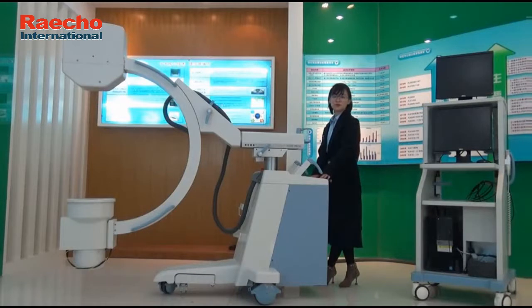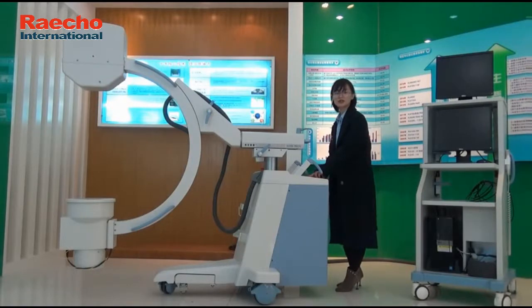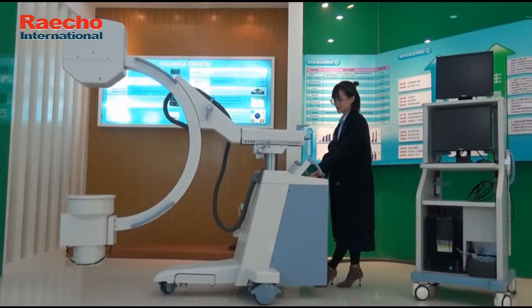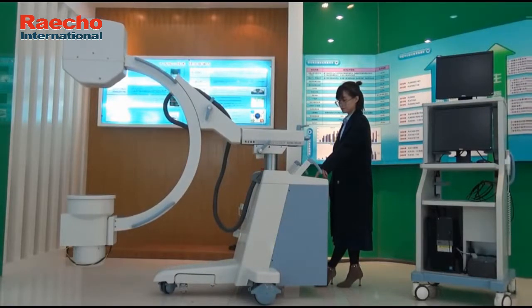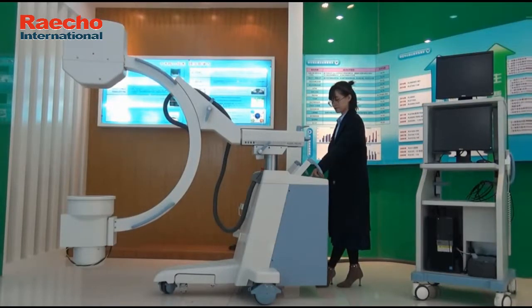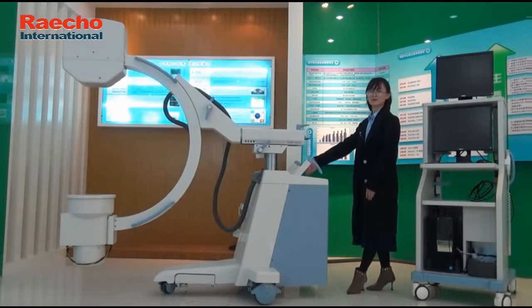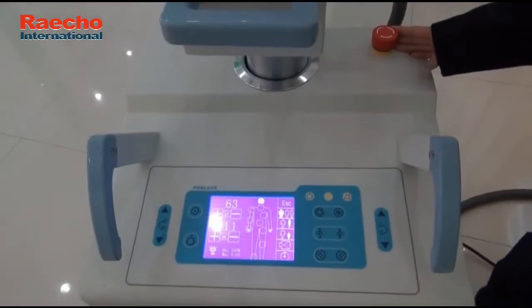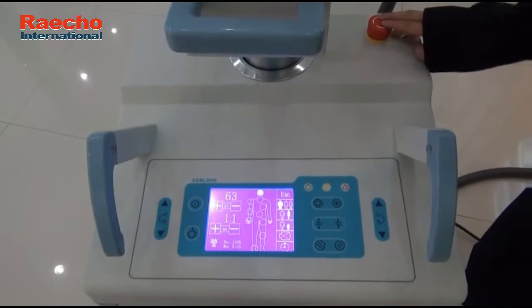On the upper side of the panel, there are two seat icons. After you select any mode and press these icons, the C-arm can be motorized up and down. In the upper right corner of the machine is the red knob called the emergency stop knob. During operation, if there is a sudden failure of the automatic up-and-down movement, you can press the button to lock the machine. And don't forget to turn it back afterward.